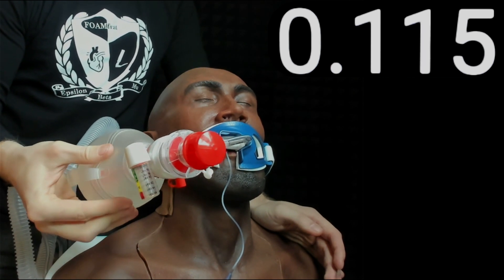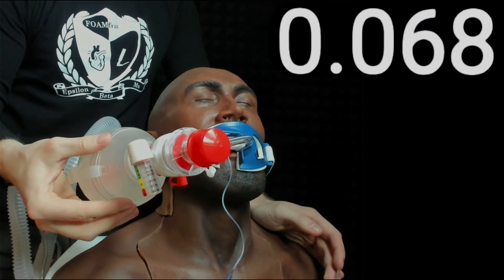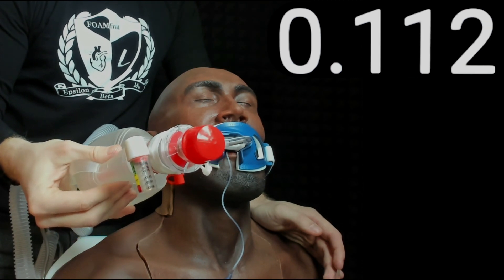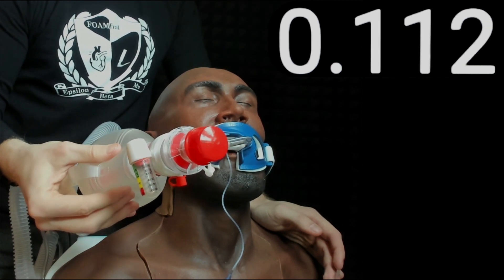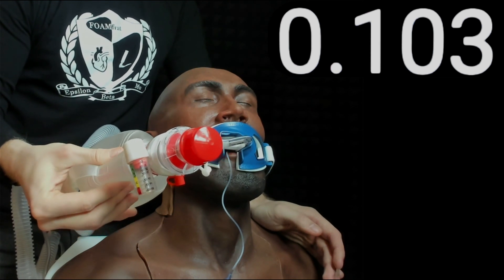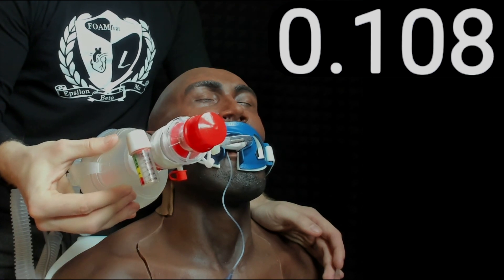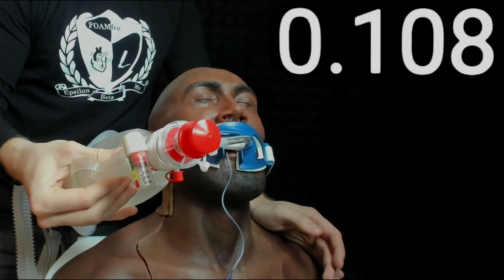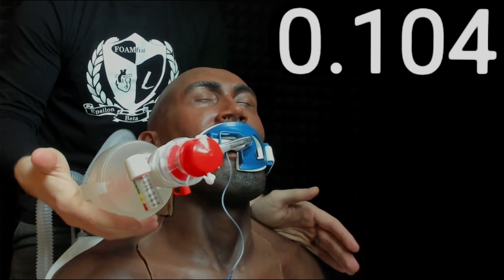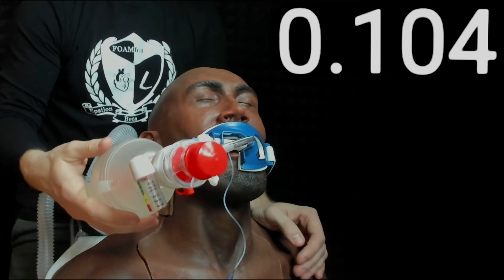If you want to get under 100 milliliters, your fingers would probably come halfway into this bag valve mask along the seam — you wouldn't squeeze it all the way, staying around about 100 milliliters. Get to know your equipment and whatever bag valve masks you have. I'll also show you how to approximately measure your tidal volumes without using one of these fancy machines.